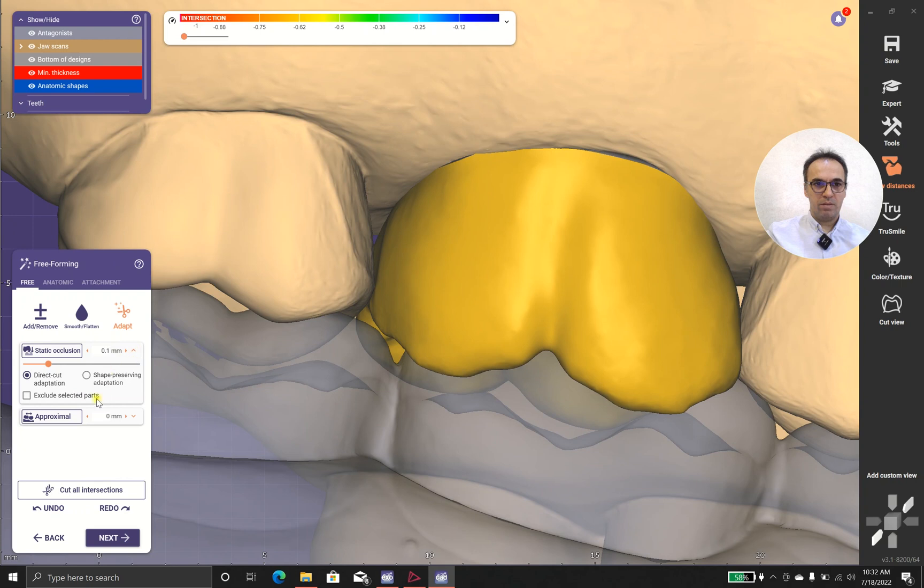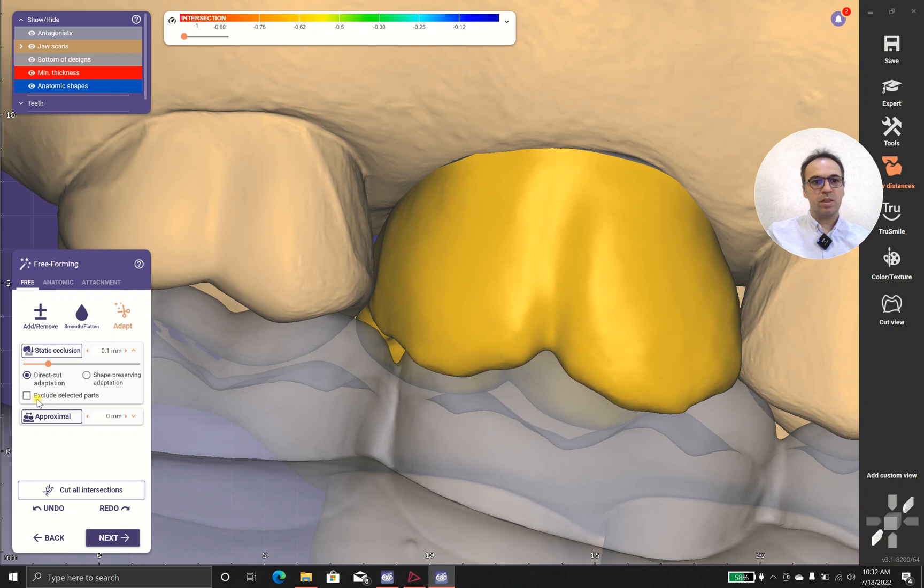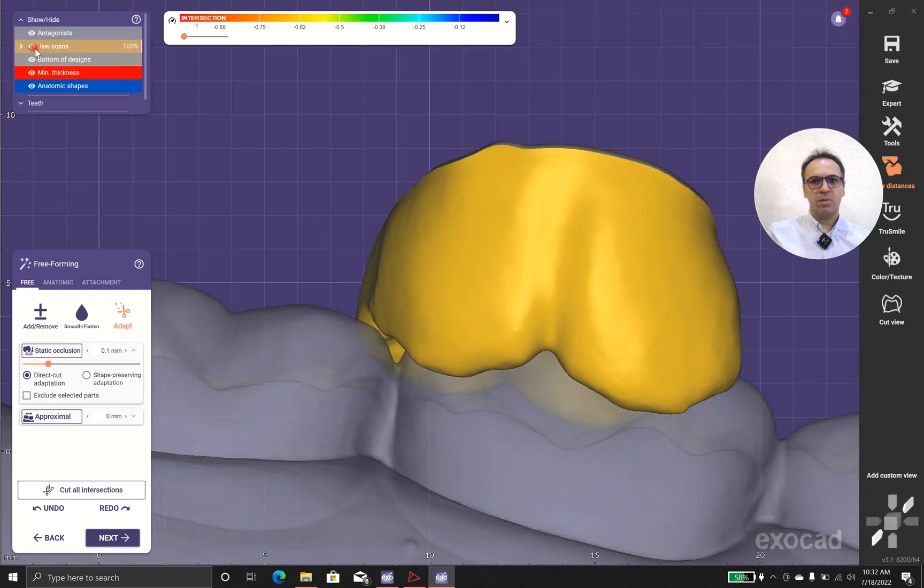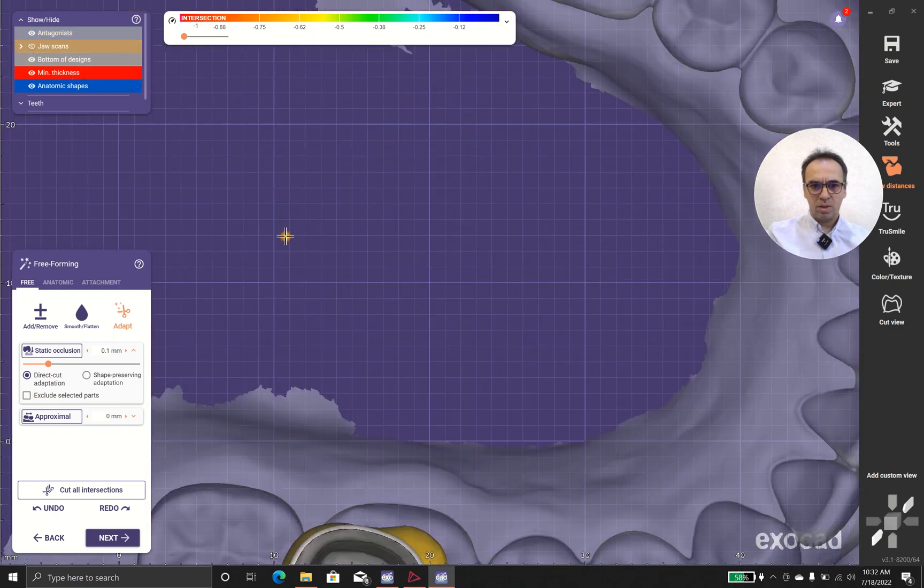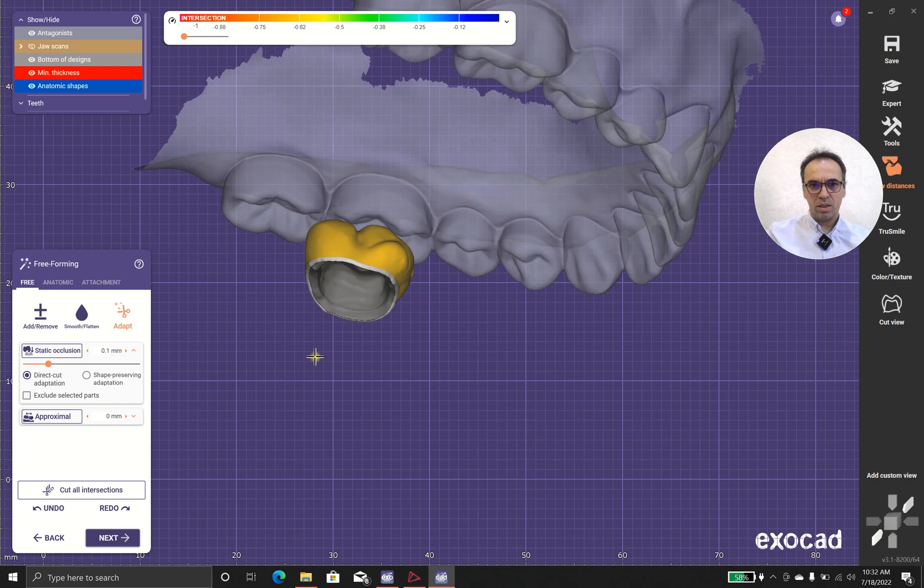Let's see what we have here. We can have sharp, or we can cut, and we could exclude. Sometime, let's see, we don't have in this case.